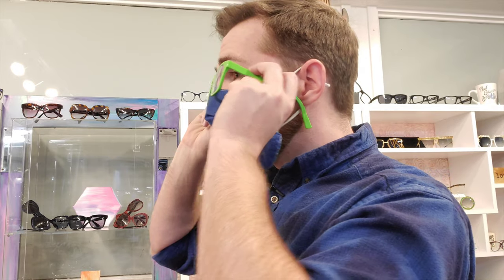The one I typically don't like to see — because it affects things very much in a negative way in most cases — is retroscopic tilt, which is when the bottom of the frame is out more. Essentially, the lenses are far away from the cheeks. Especially with progressive lenses, that causes the reading area to be hard to access. It increases the magnification by math, but doesn't increase the accessible amount of magnification, which is kind of what we actually want. It's how much of the lens you can actually use.